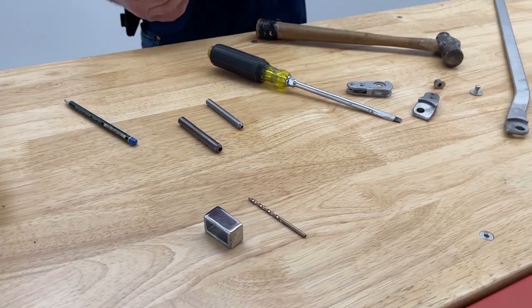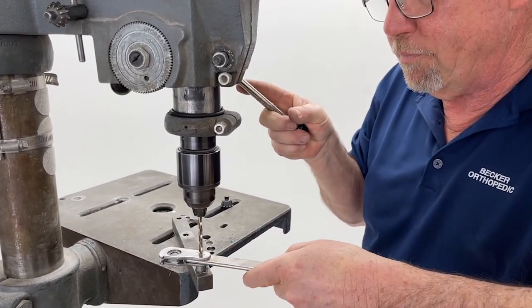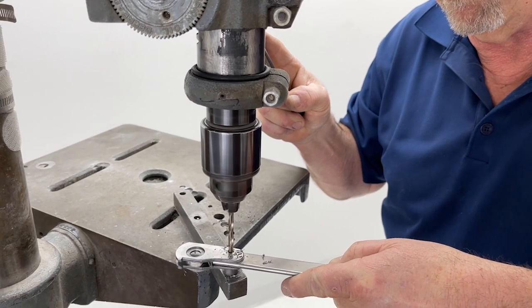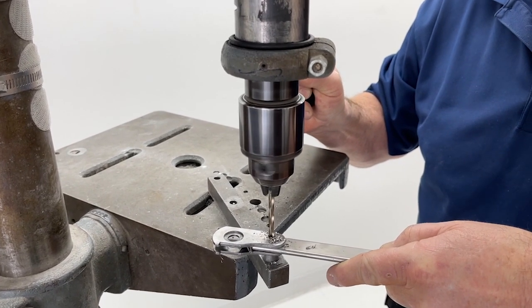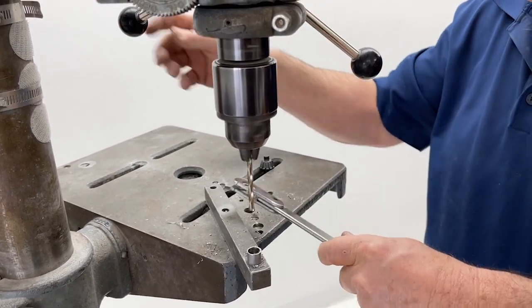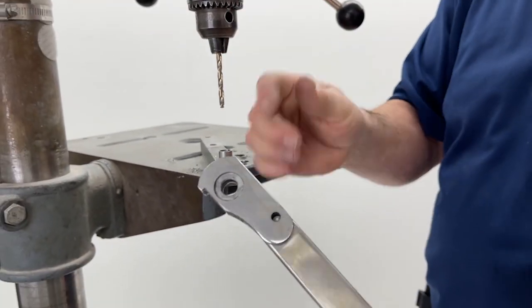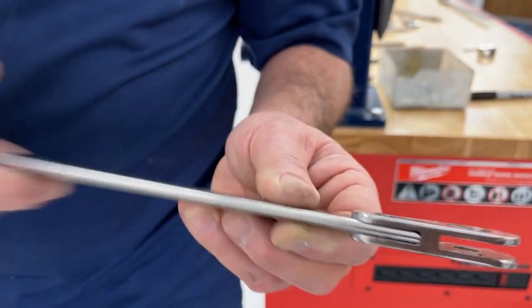We're going to go ahead and drill our hole. The hole was set up to go through the first layer of the casting and also through the bar, but not to go through the second layer of the casting.